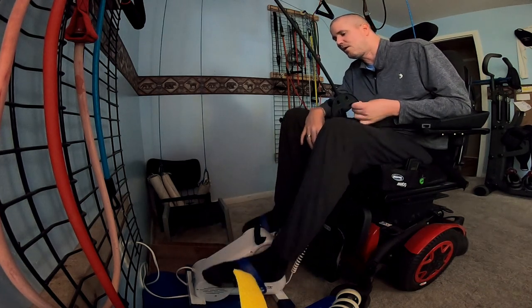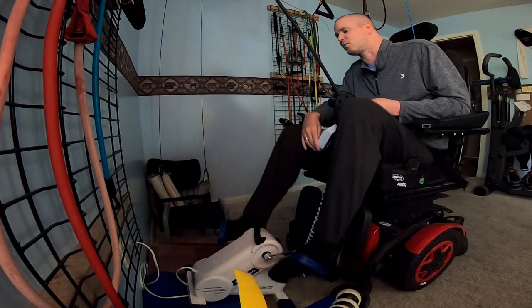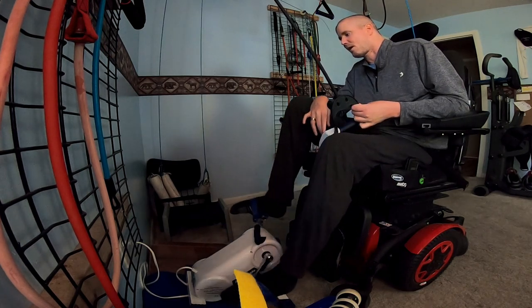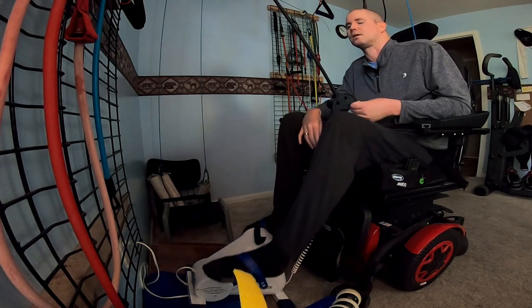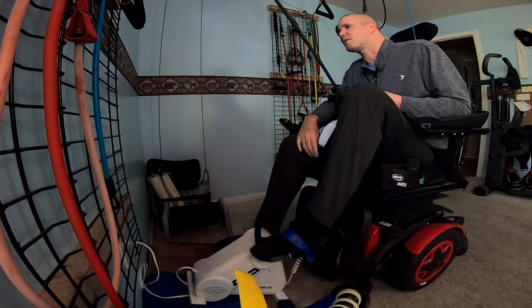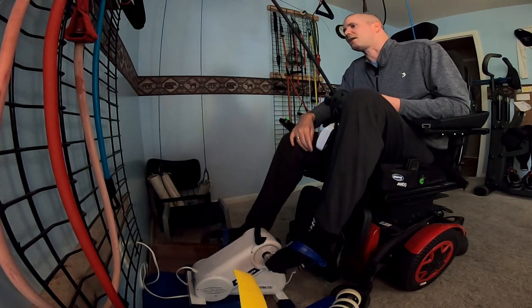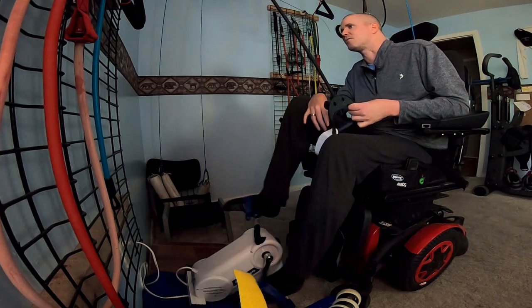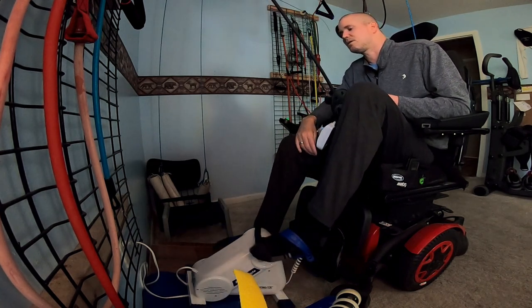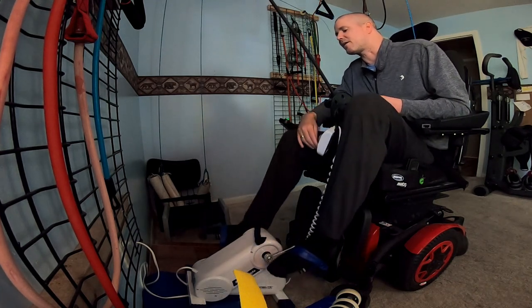Personally, when I do this, sometimes I do it every day after work. If I'm off of work, I try to do it. And the more I do it, the more I notice when I start missing a day here and there. If I'm missing one day, it seems to be okay. But if I miss a few days, I notice my legs don't feel as good, I don't sleep as good, I have more spasms. So for me, this peddler is very beneficial.